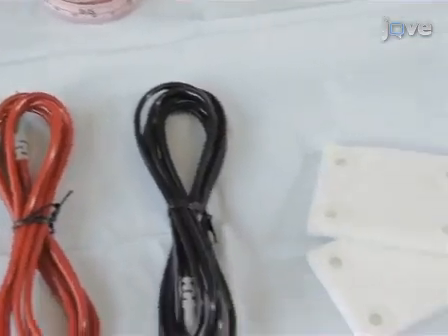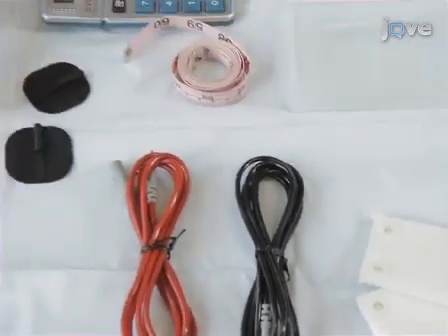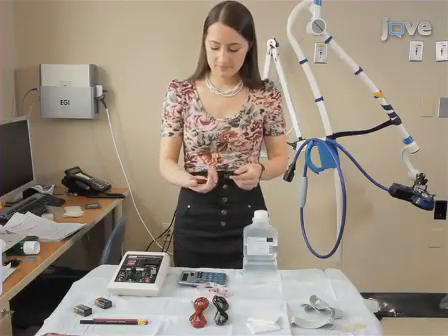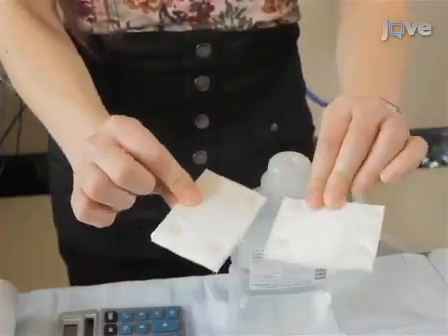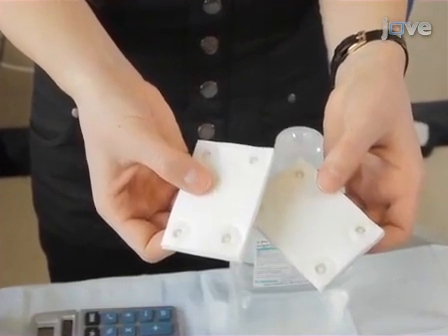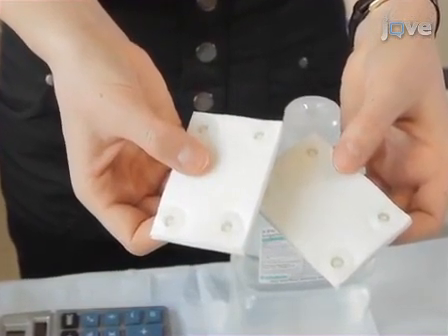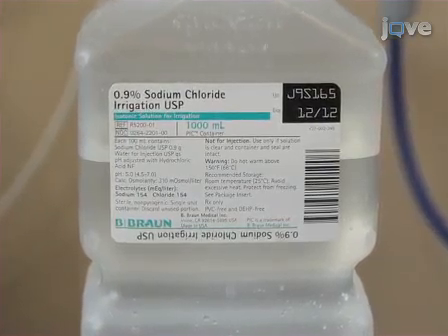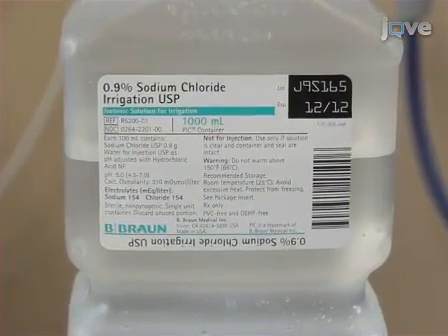The electrodes used for TDCS are generally conductive rubber electrodes enclosed in a perforated sponge saturated with electrolyte fluid. If reusable rubber electrodes are used, be sure to inspect these for wear before use. It is recommended to use perforated sponge pockets that are not too coarse, as these best absorb the electrolyte solution and provide uniform skin contact while buffering the skin from electrochemical and pH changes. Sodium chloride solution in the concentration range of 15 to 140 millimole is recommended to assure patient comfort while minimizing stimulation voltages.